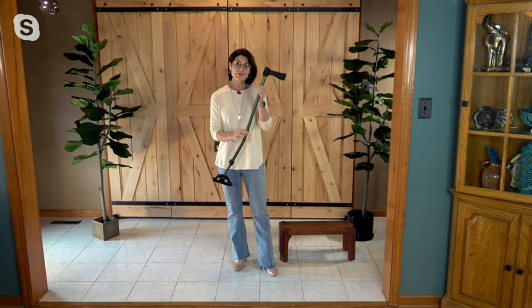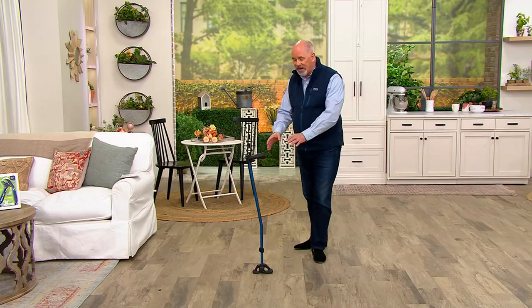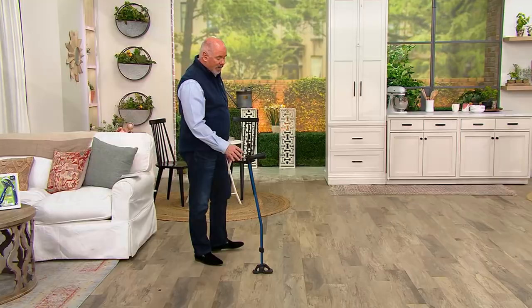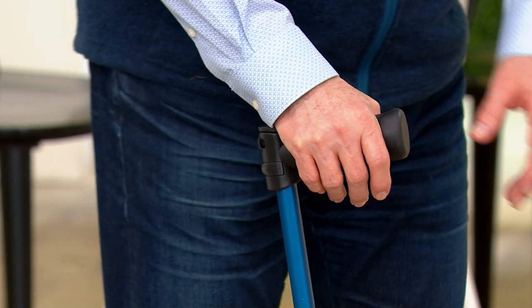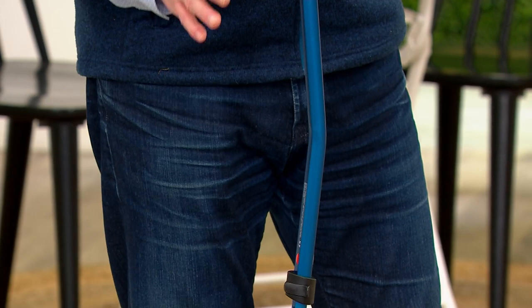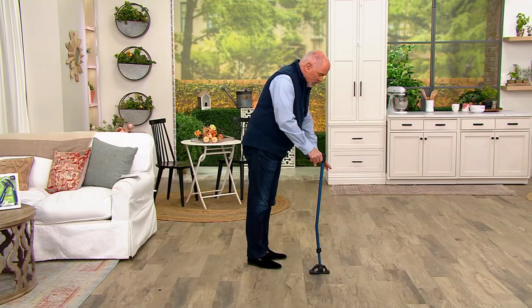Here is one other factor. It almost appears like the cane is backwards — usually your cane has the handle towards you, but this one works with the handle away from you. There is a subtle dip and bend in the cane. What that does is keep you in a straight arm motion but prevents your body from leaning forward. A regular cane, you put your pressure when you're leaning forward. With this one, your pressure is when you're upright, so you've got a full stance.